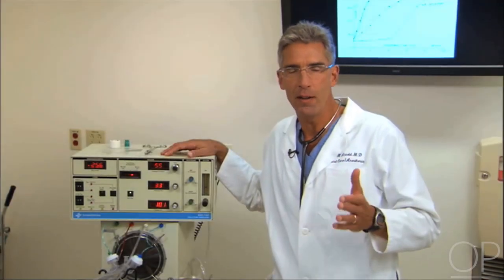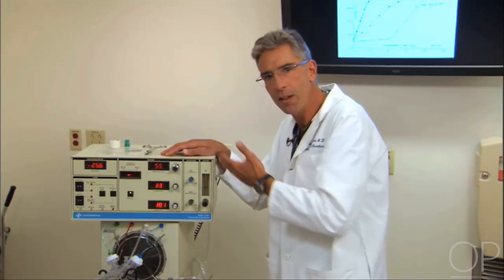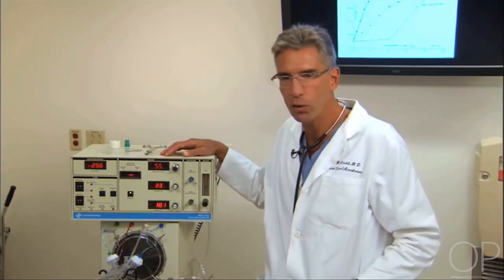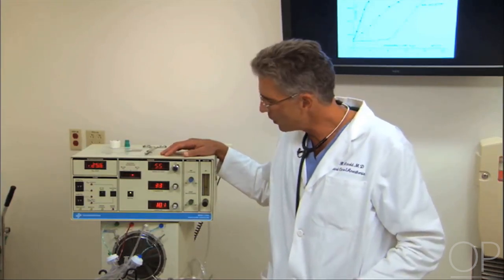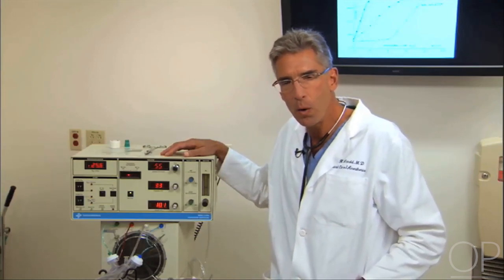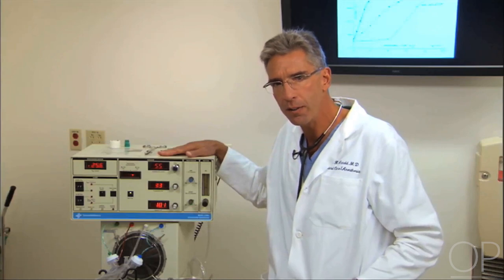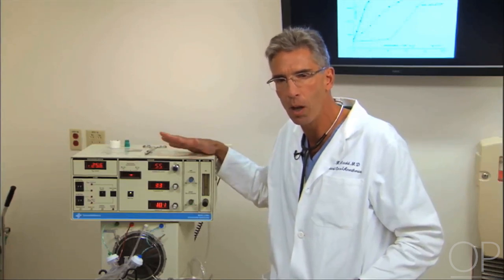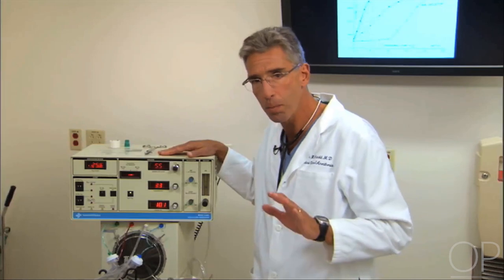I'd like to take several minutes to demystify this device. This is a high frequency oscillatory ventilator as you know. This is the SensorMedx 3100A and when initially confronted with this device in the ICU setting many people are confused. Let me help. This is simple.